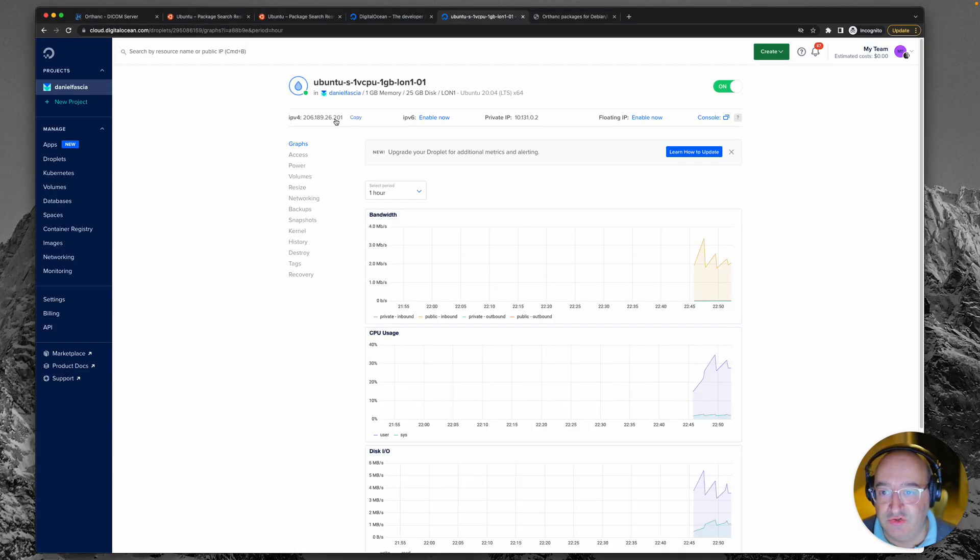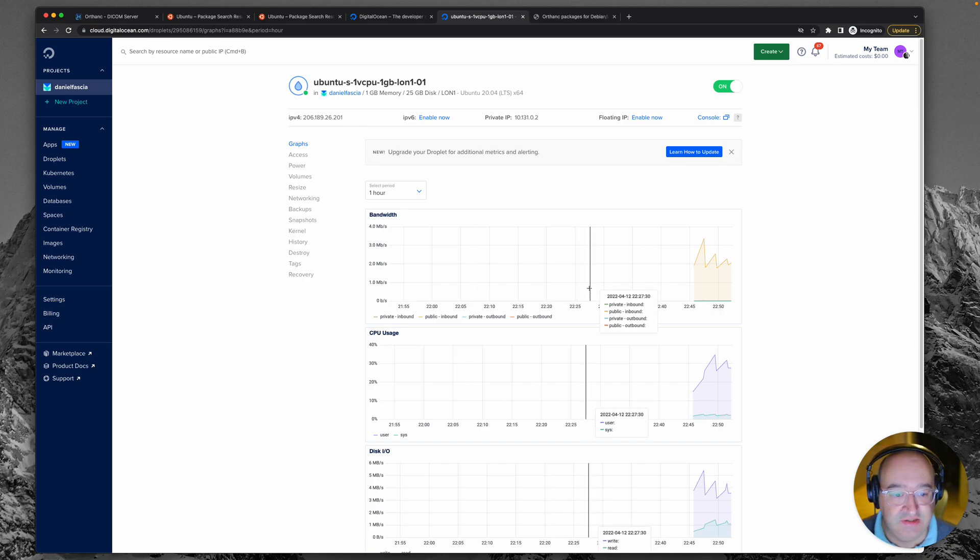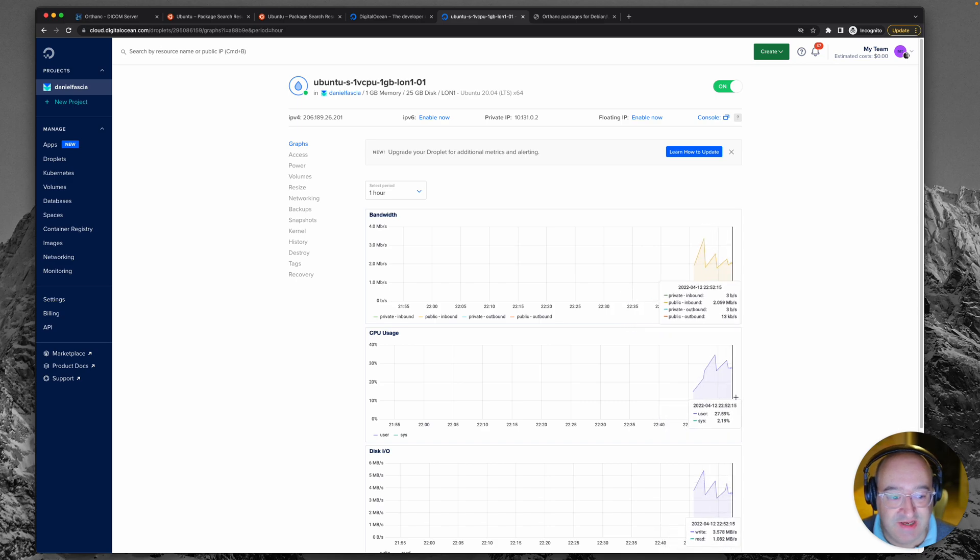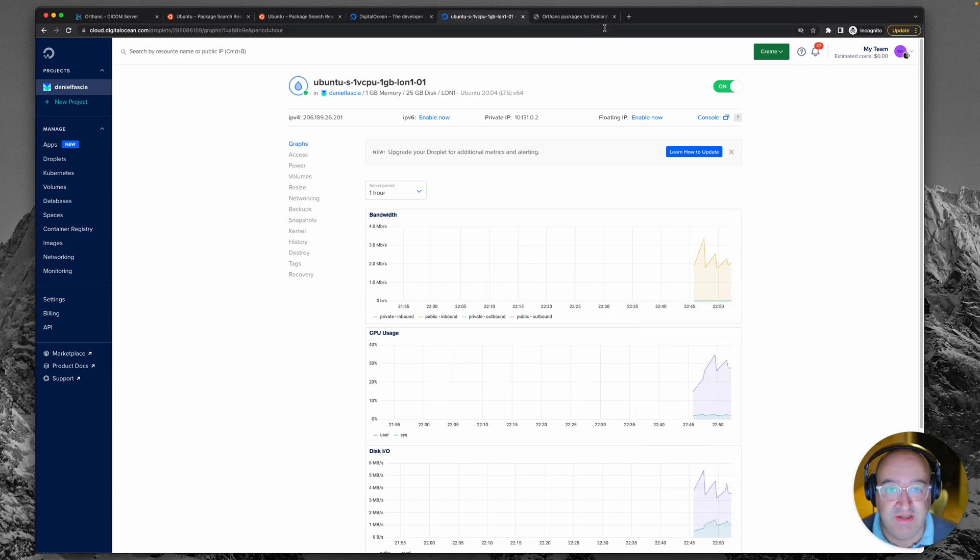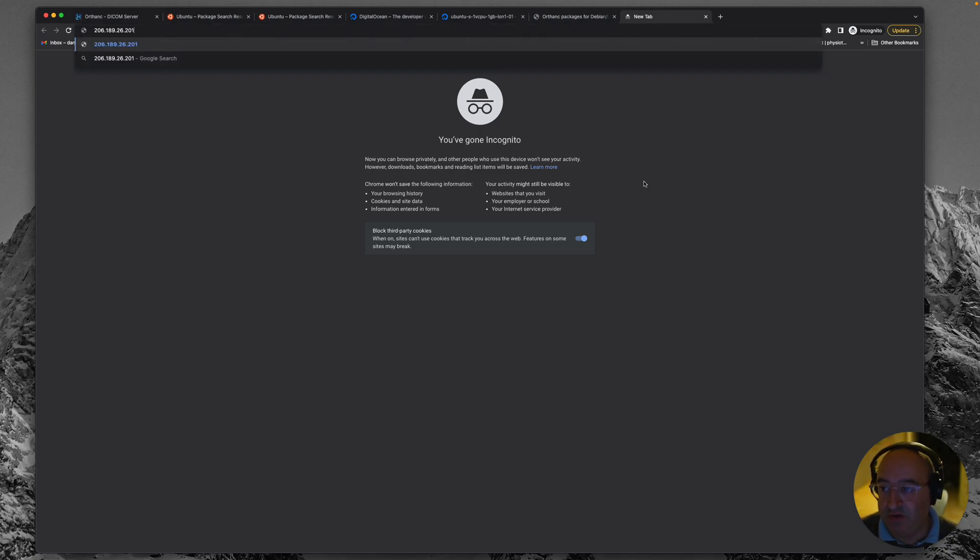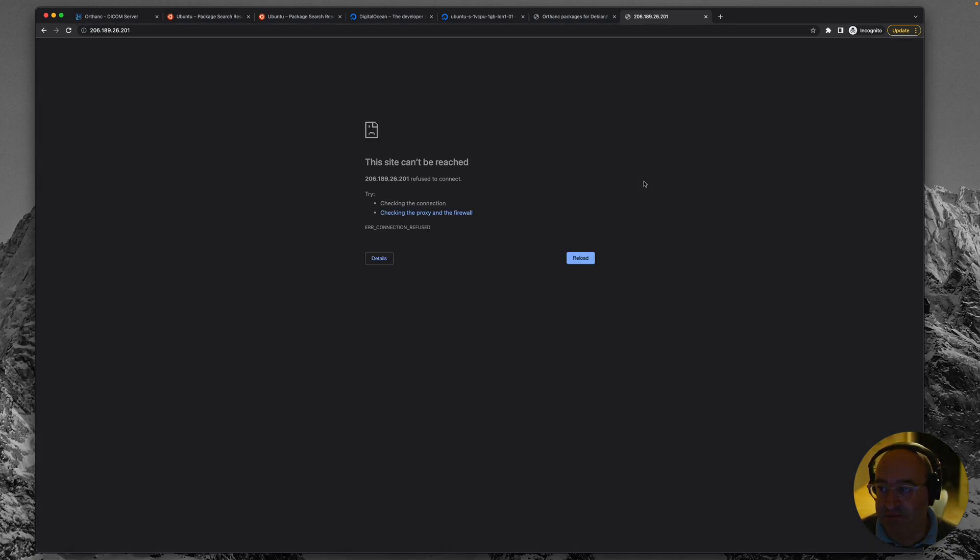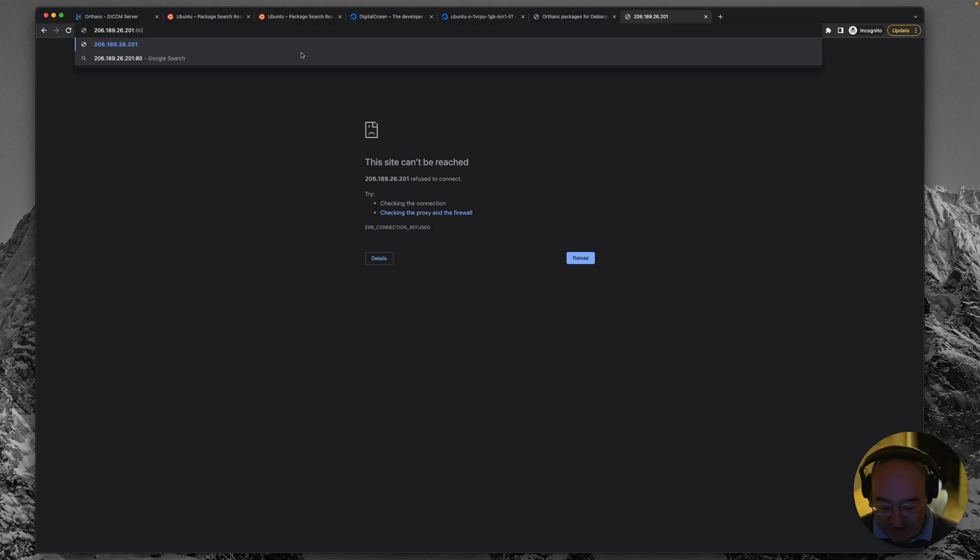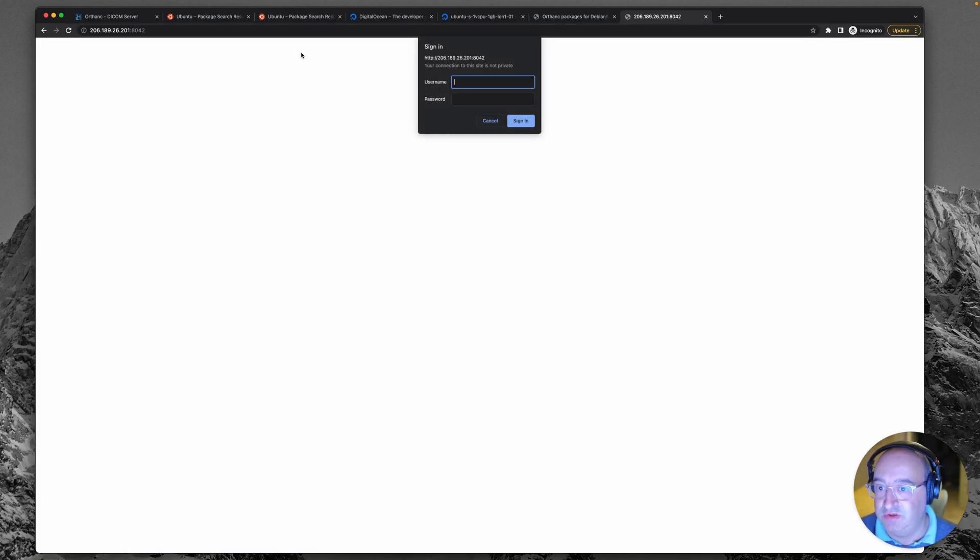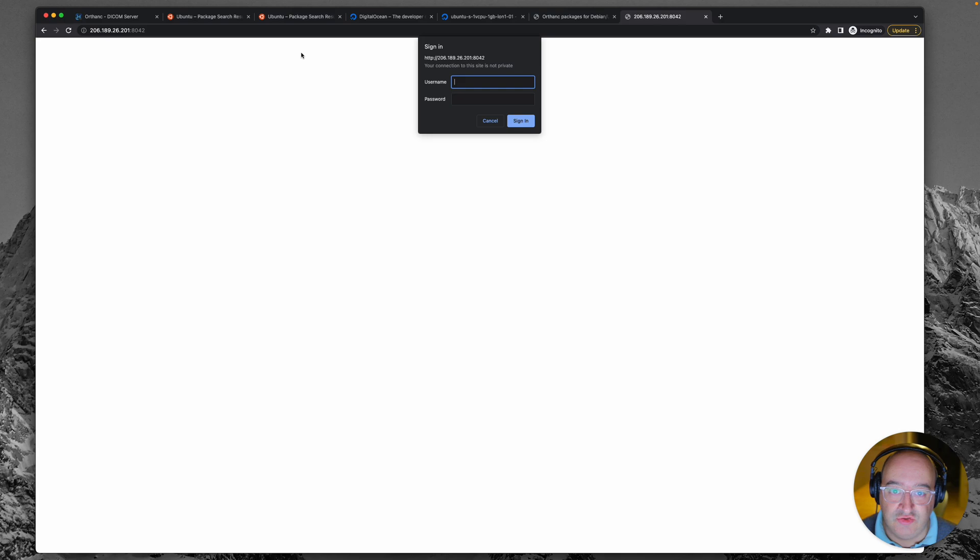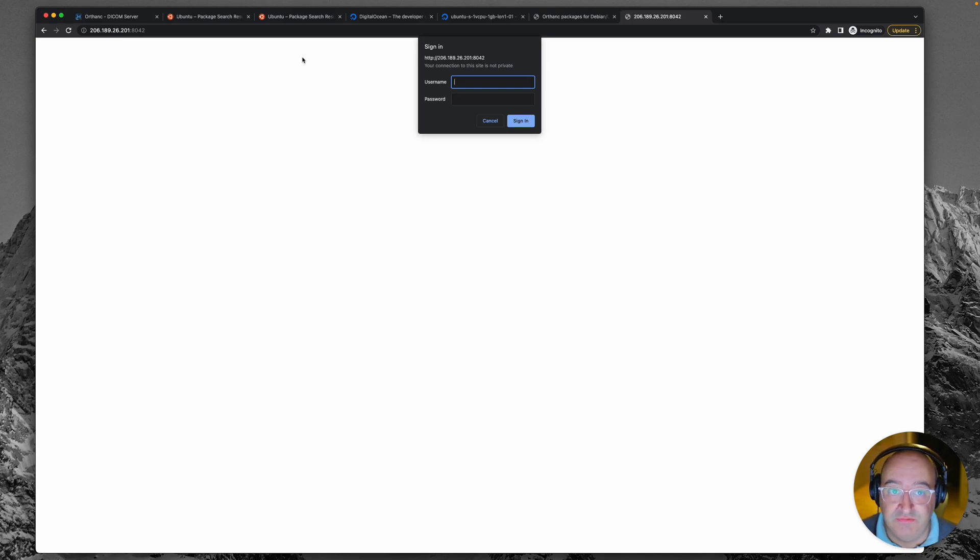So let's go back over to here, back to our droplet again, and just copy the IP address. Interestingly you can see the spikes of traffic since it was created and that's us installing all those packages. Right, let's just go to a new browser tab and just type in the address and it should do nothing. However, if we attempt to connect to port 8042, boom, we're presented with a password request and that's because Orthanc server is running and it's trying to allow us to log in to the PACS. Brilliant, it's working.